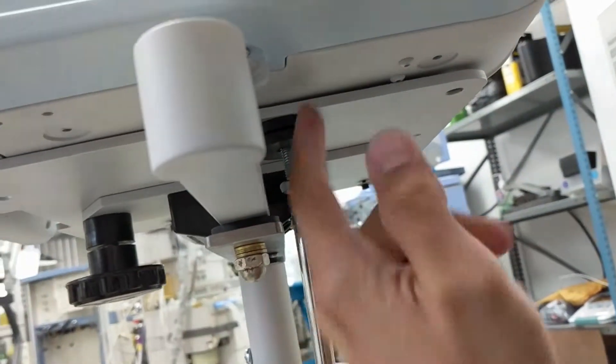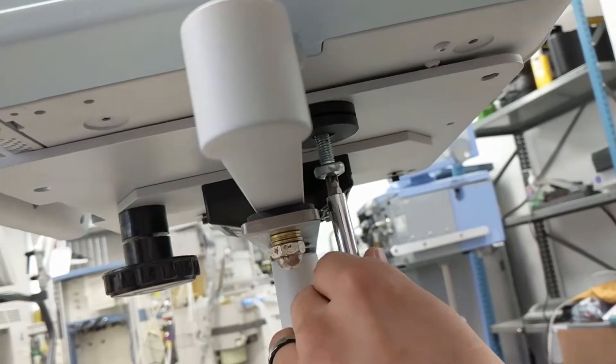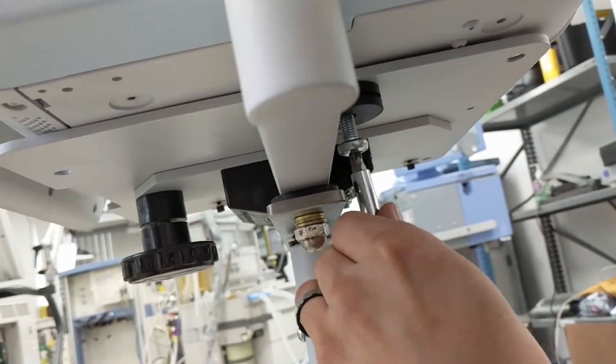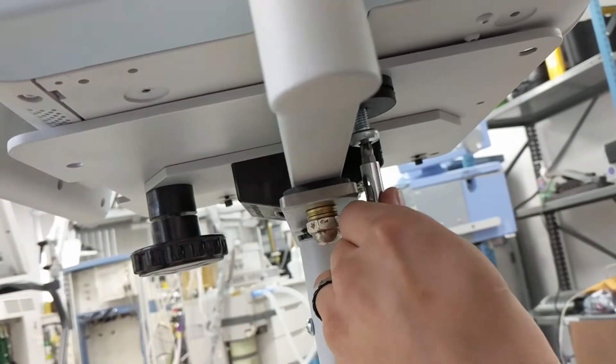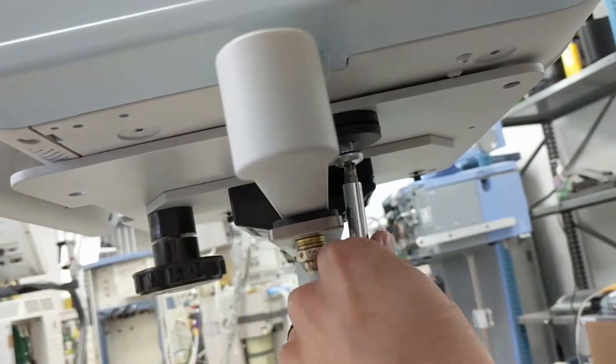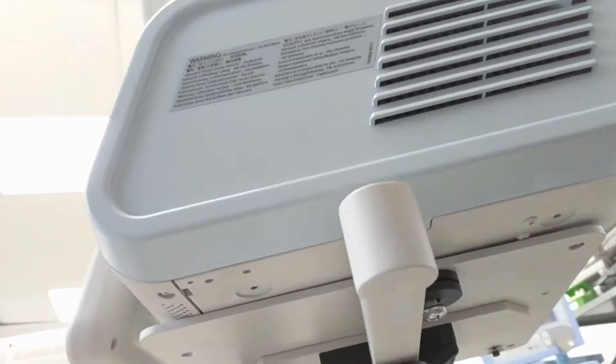With lining up this hole with the bottom hole of the unit, but it will fit, and you would just naturally tighten the screw all the way in. I wouldn't go all the way in until you check on the back two screws.